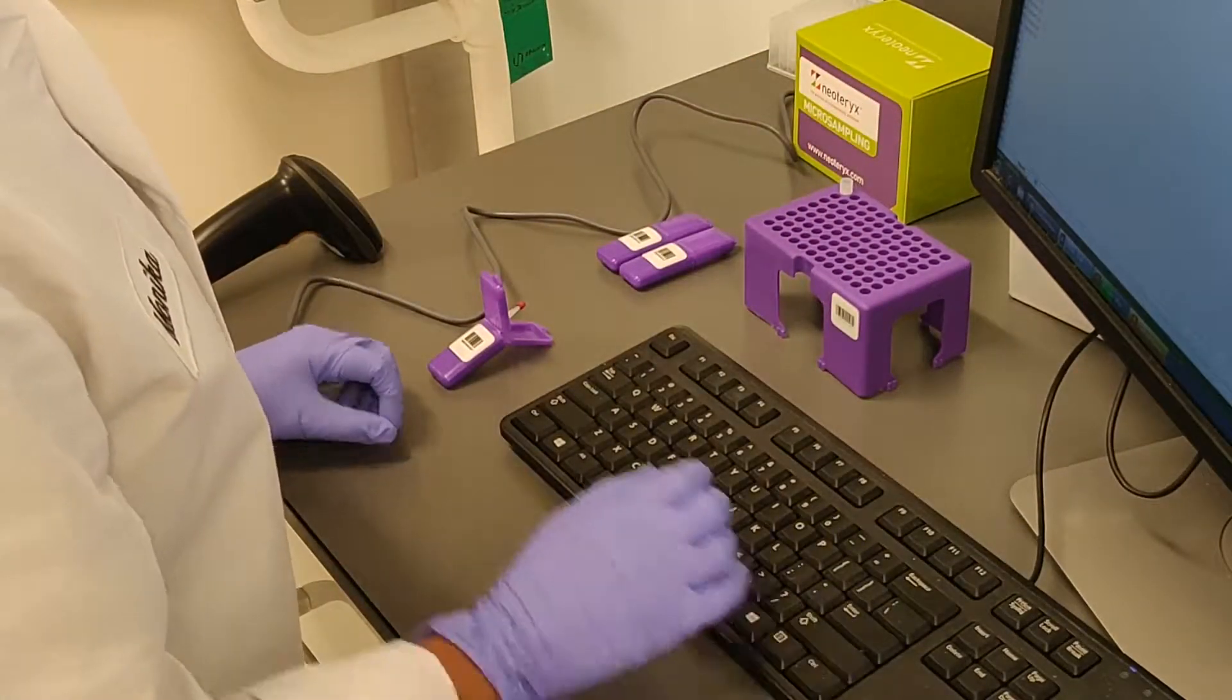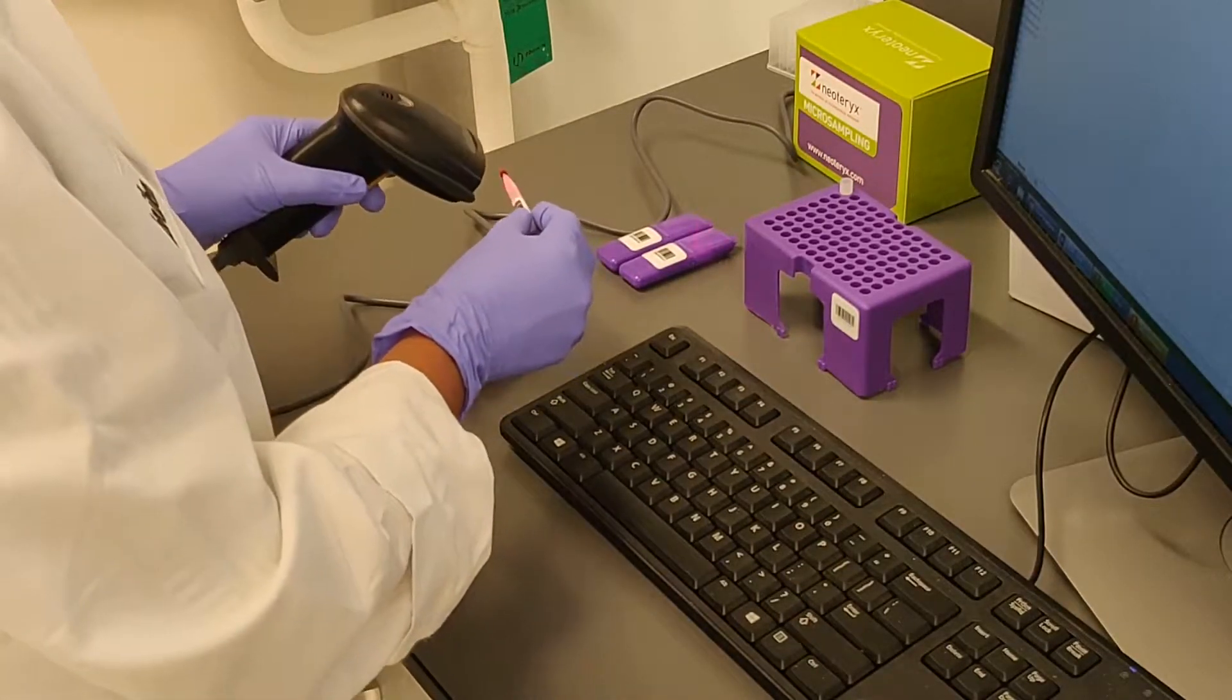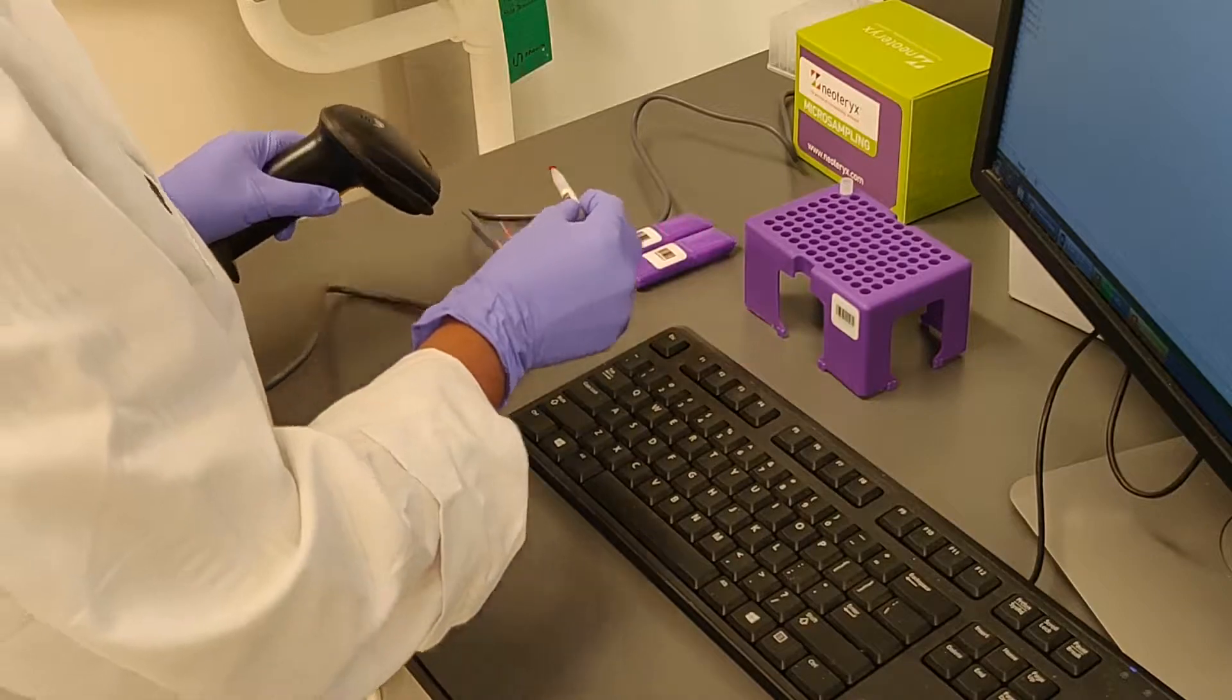Once Mitra samplers are removed from the cartridge, they fit right into our 96 Auto Racks, which are designed for automated extractions.